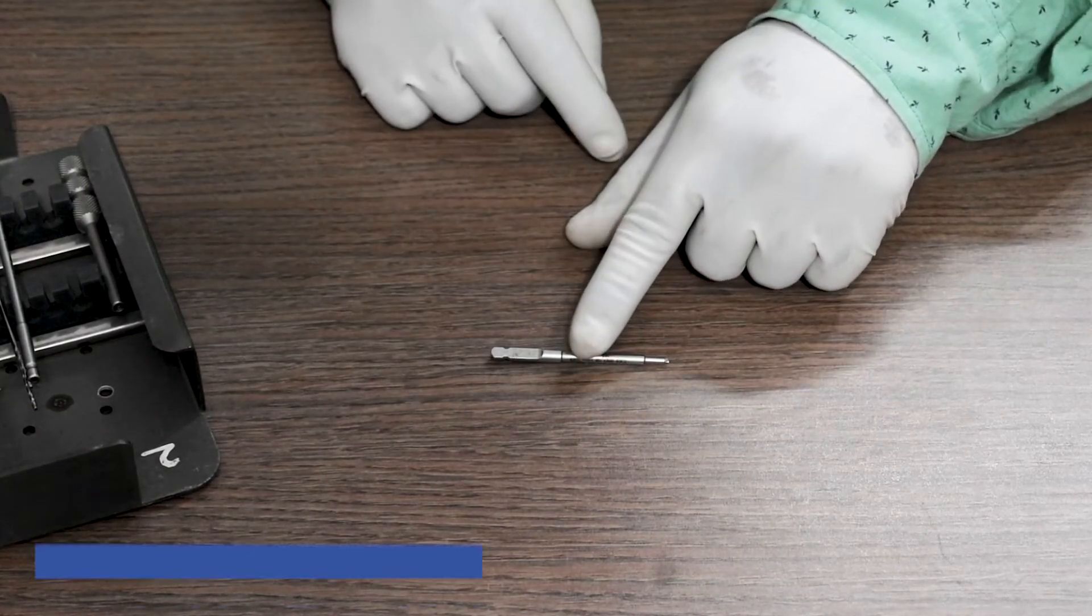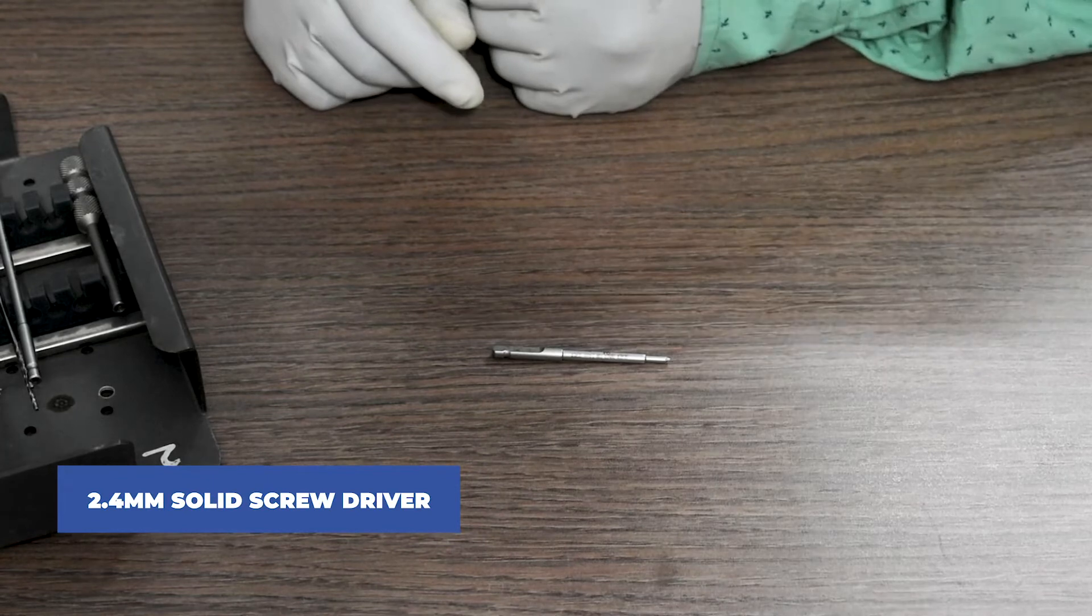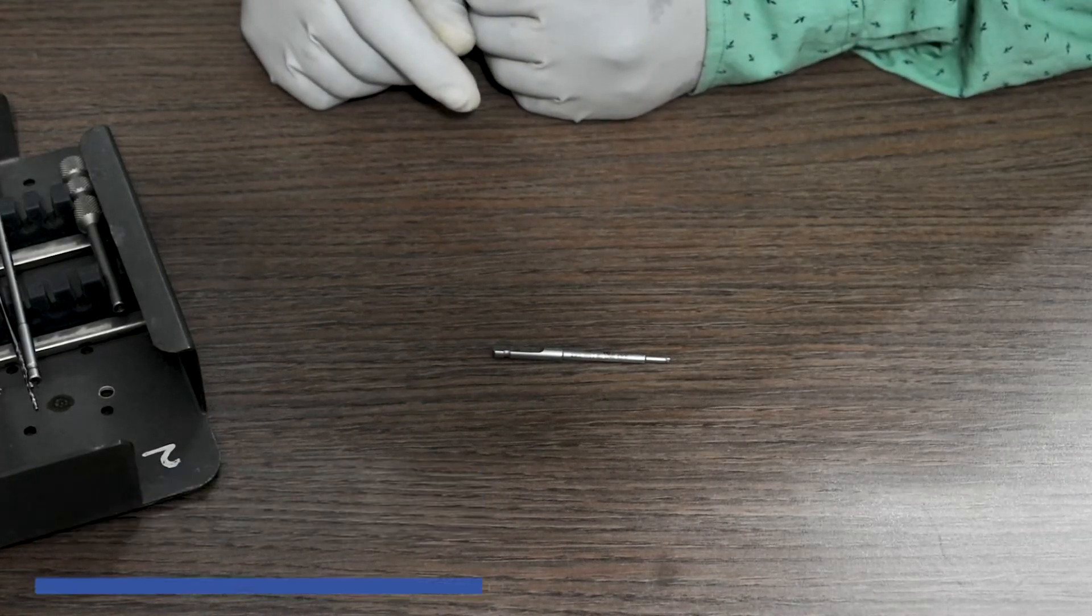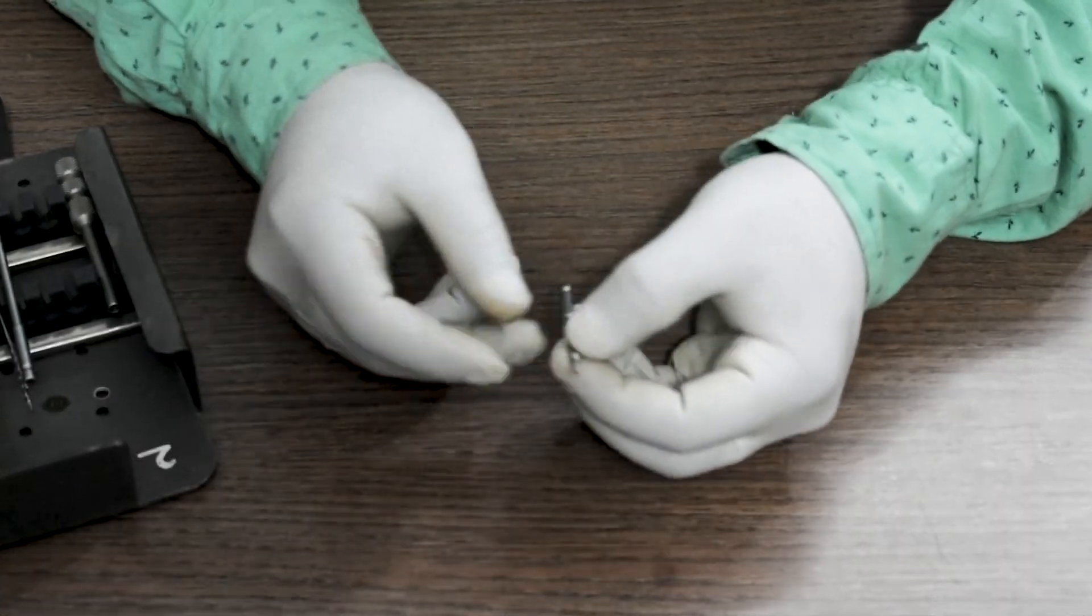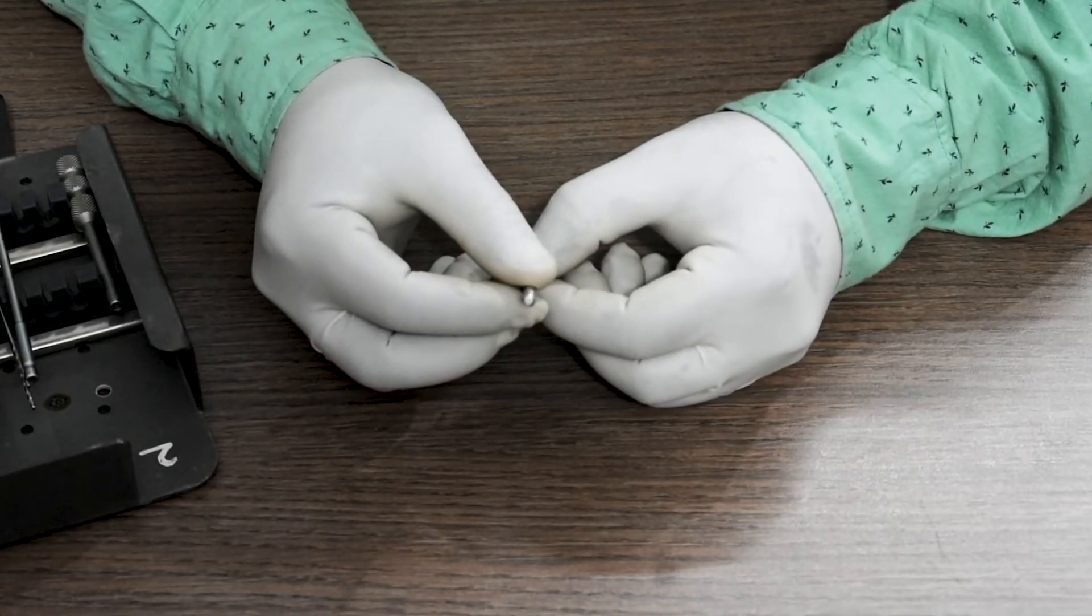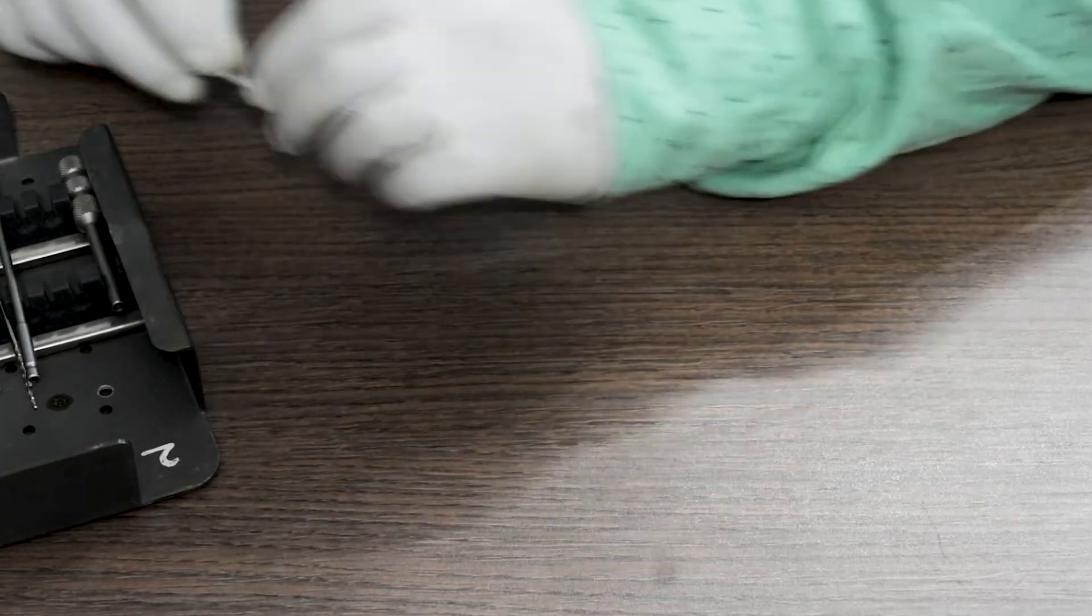A 2.4mm solid screwdriver. This can be used with a Quick Coupling Handle as an attachment.